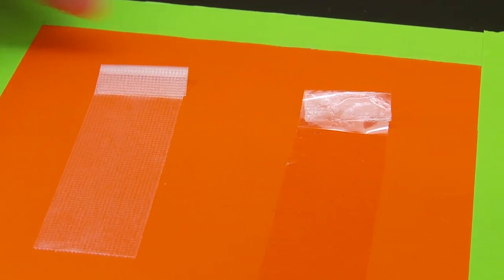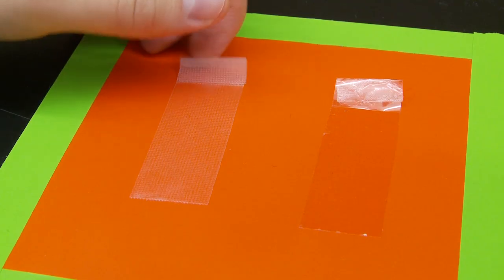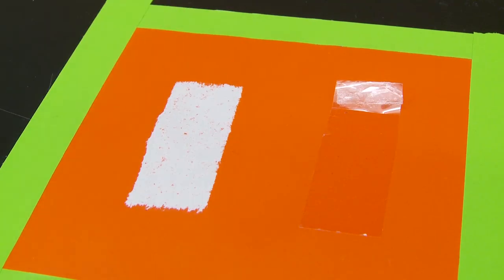We could simply add baby powder to it to de-tackify it so it's no longer sticky. Origami paper is delicate like a newborn's skin. It's used to show how traditional medical tape tears the skin.